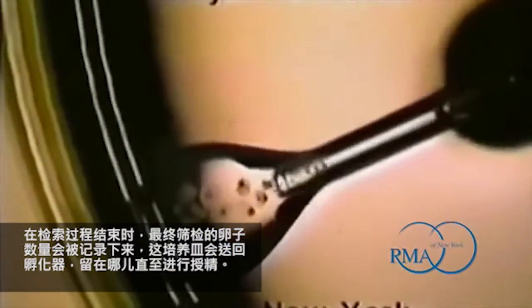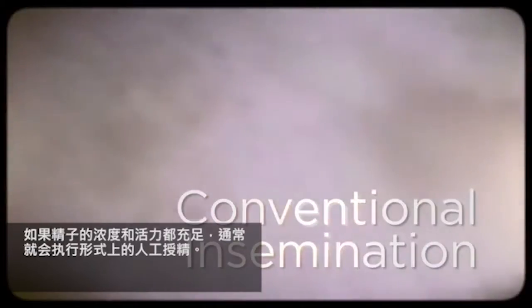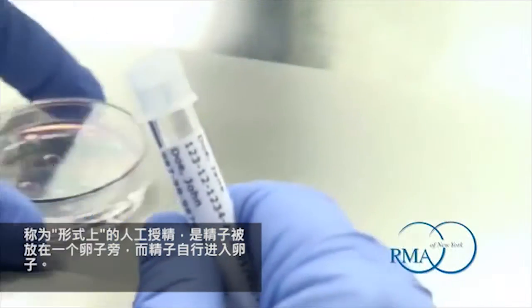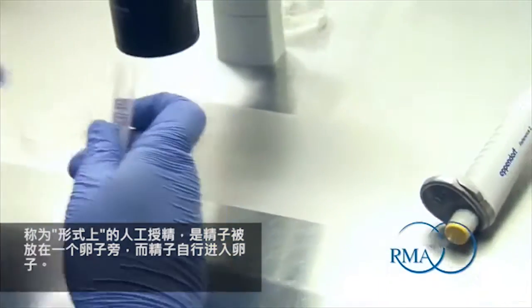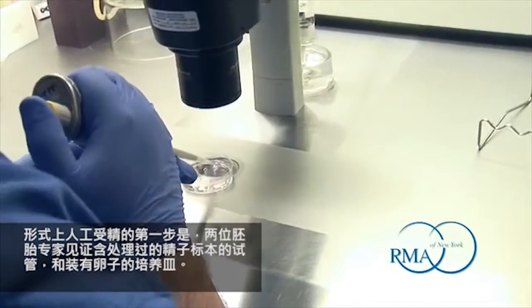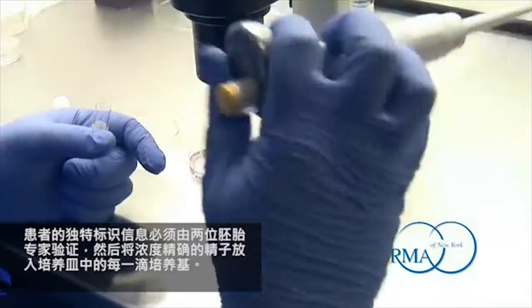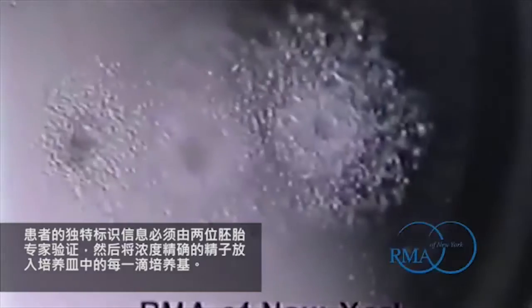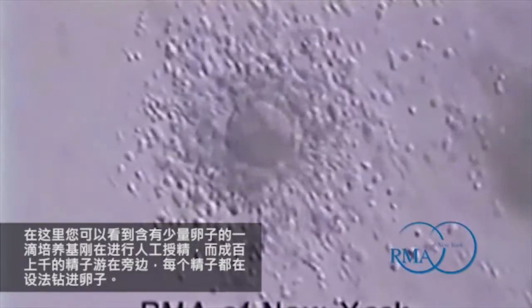At the conclusion of the retrieval procedure, the final number of eggs retrieved is recorded and the dish is returned to the incubator where it will remain until the time of insemination. If the sperm concentration and motility are deemed adequate, a conventional insemination is typically performed. An insemination is called conventional when sperm are placed next to an egg and the sperm are allowed to penetrate the egg on their own. The first step is to have two embryologists witness the test tube containing the processed sperm specimen and the culture dish containing the eggs. The unique patient identification information must be verified by both embryologists before a precise concentration of sperm is placed into each media drop in the culture dish. Here you can see a drop containing a few eggs which were just inseminated and thousands of sperm swimming around them, each sperm trying to reach an egg.